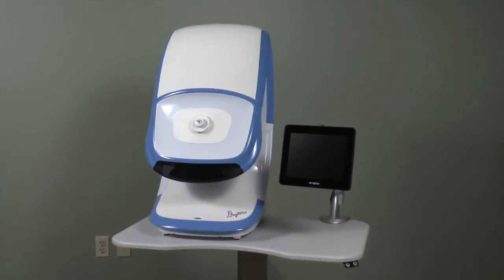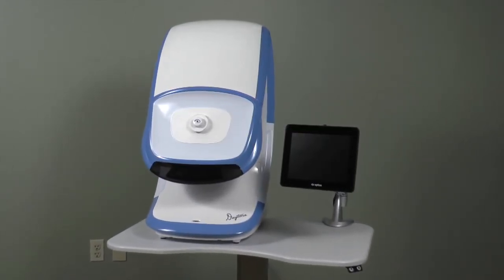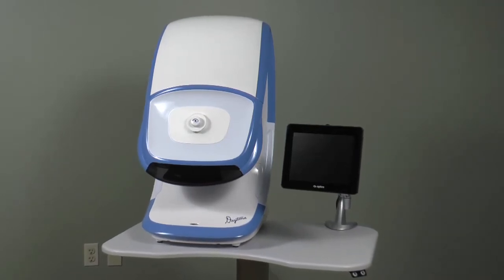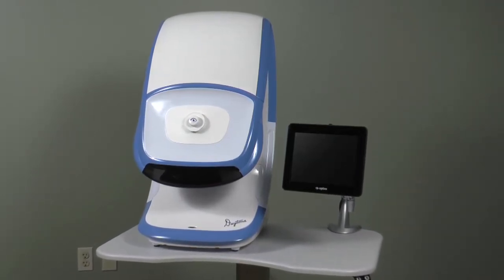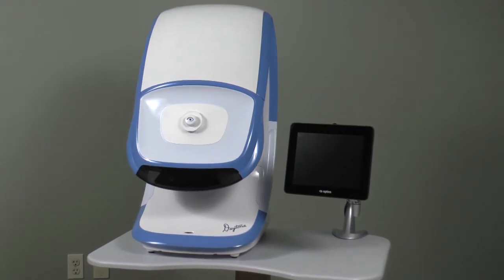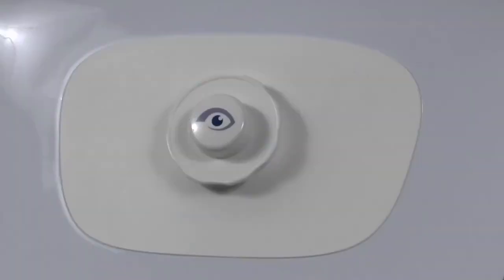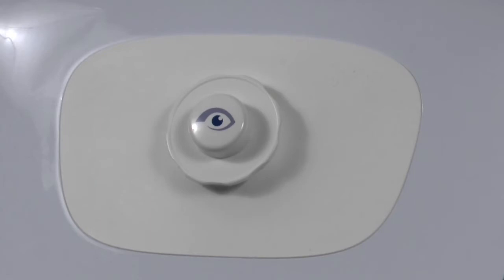Let's review the different parts of the Daytona device. This is the scan head, as it sits on the height adjustable table, along with the touch screen tablet, and here are the eyepiece and dust cap.